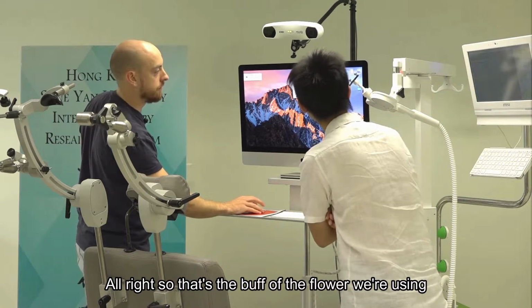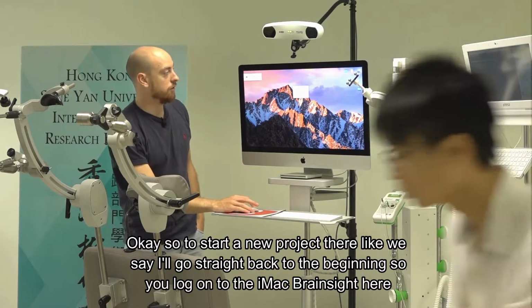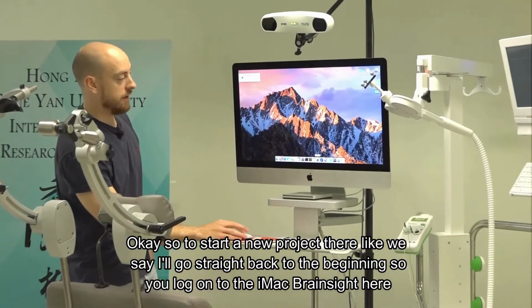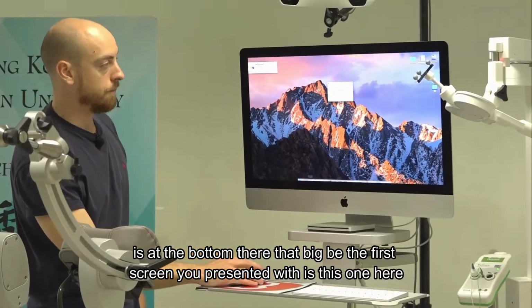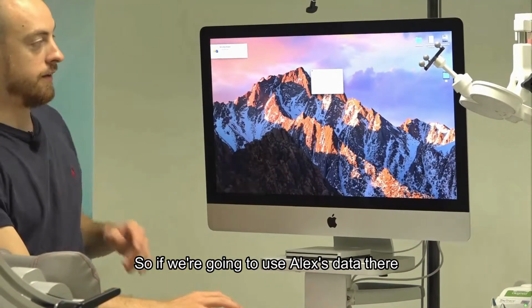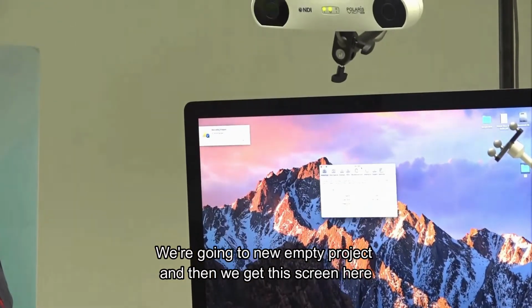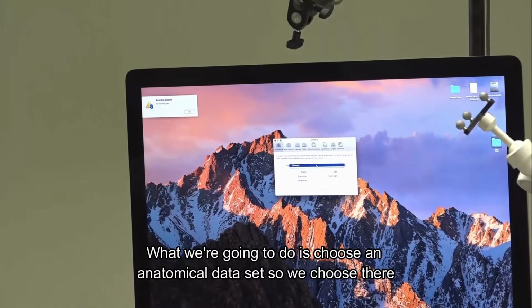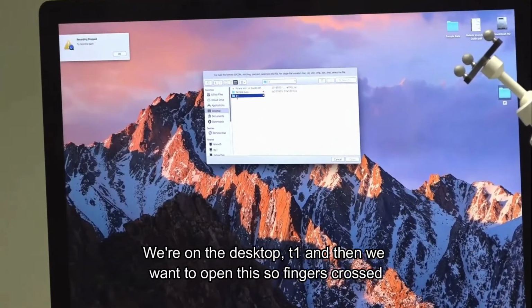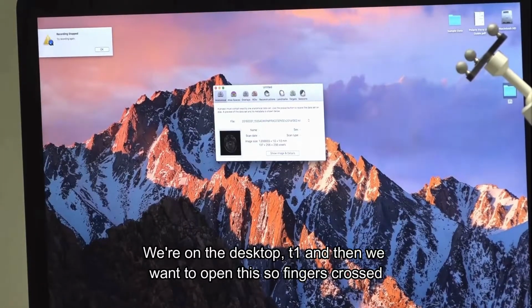All right, so that's the file we're using. To start a new project, I'll go straight back to the beginning. So you log on to the iMac. BrainSight is at the bottom there, that big B. The first screen you're presented with is this one here. If we're going to use Alex's data, we go to new empty project, and then we get this screen. What we're going to do is choose an anatomical data set. So we choose there, on the desktop, T1, and then we want to open this. So fingers crossed.